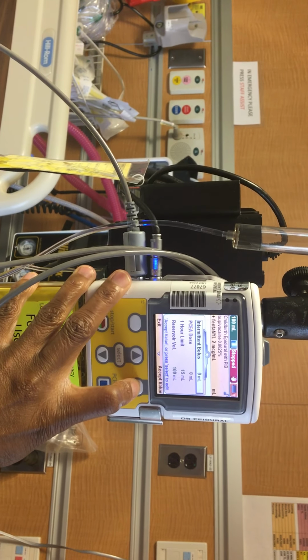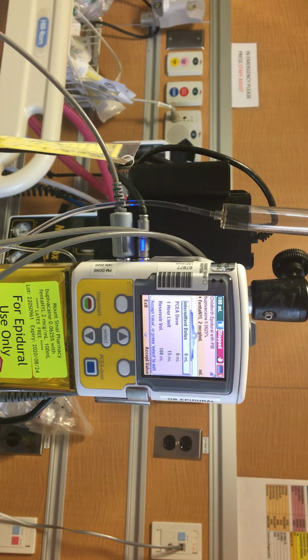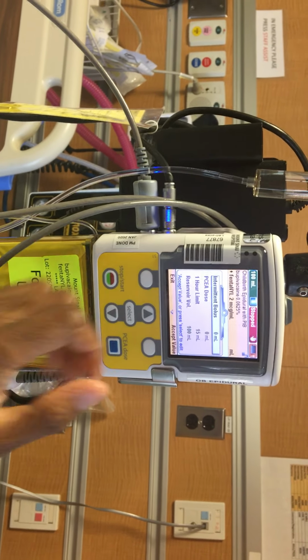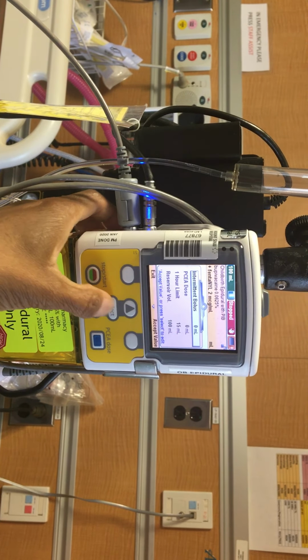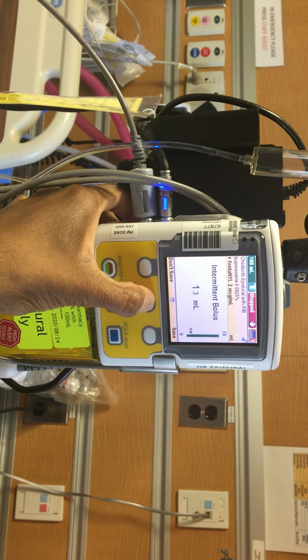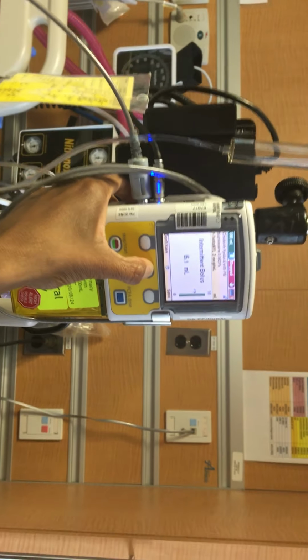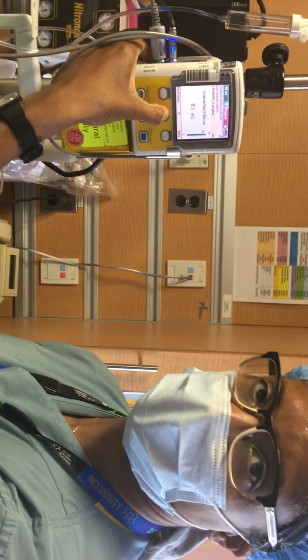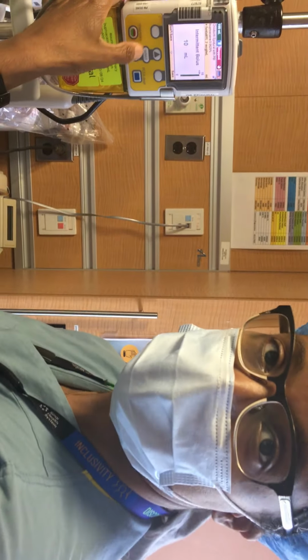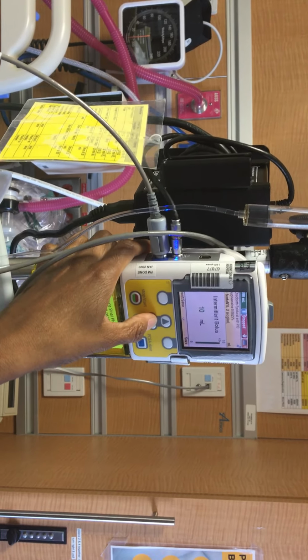So when you're reviewing the settings, it asks the intermittent bolus that you would have, and I guess the routine is usually 10. So in our case, you would hit select to choose, and then you would go all the way up to 10. You just kind of hit the up button. And when you get to 10, you want to make sure in every case that you ask anesthesia, even if it's a standard program, I always ask specifically because they might tailor it for particular needs, or they might have different numbers that they want to use. So always make sure you actually write the numbers down or check.